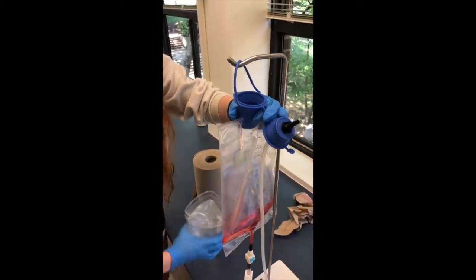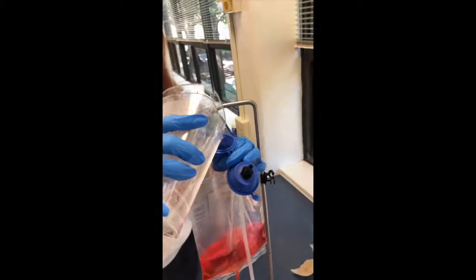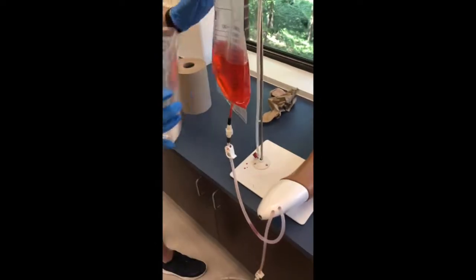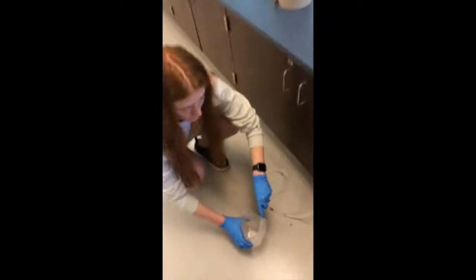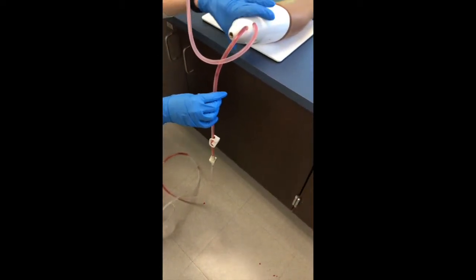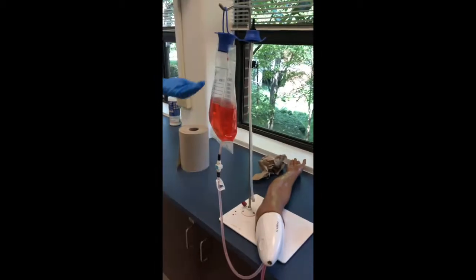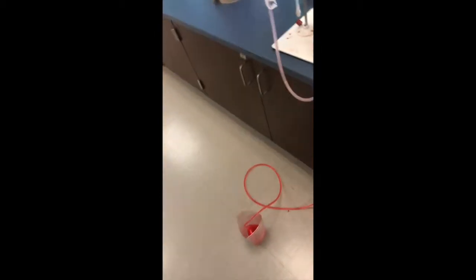Now that there's a container full of alcohol-water, just pour it into the blood bag because we're trying to run a lot of water through these arms. The tubes are all clamped right now because she doesn't want it flowing just yet. Place the adapter tube into the canister, unclamp all the clamps, and just let it drain. Sometimes flipping the arm over helps it drain faster. Let it sit and drain — it takes a couple of minutes, so you can leave it and work on another arm while waiting. There are multiple adapter tubes in the cabinets right underneath.